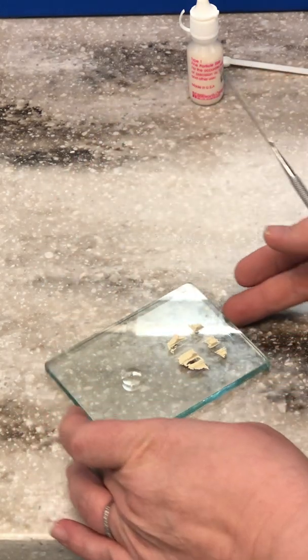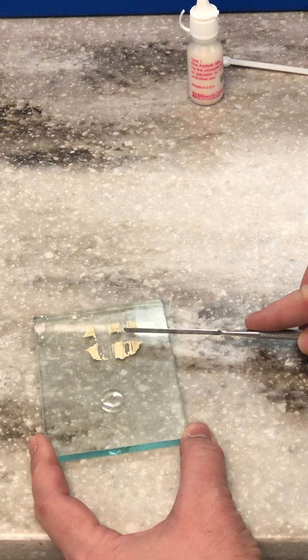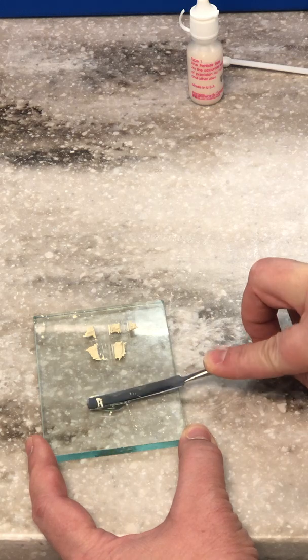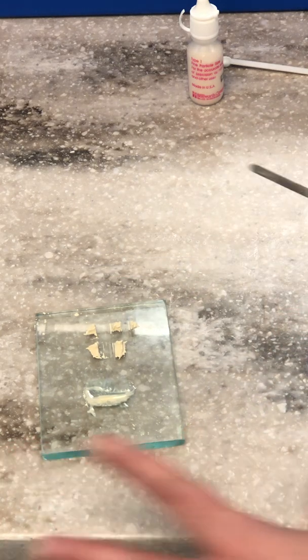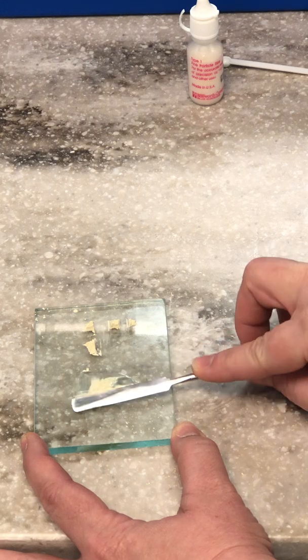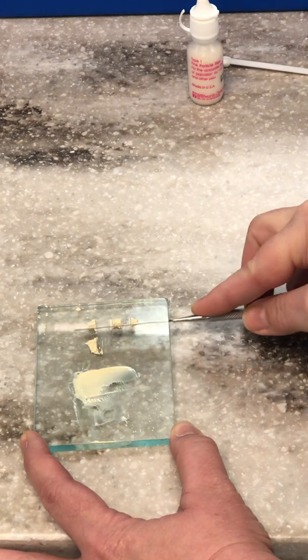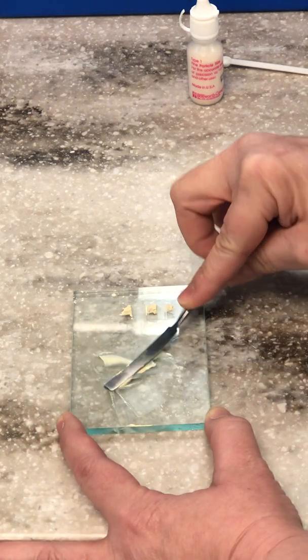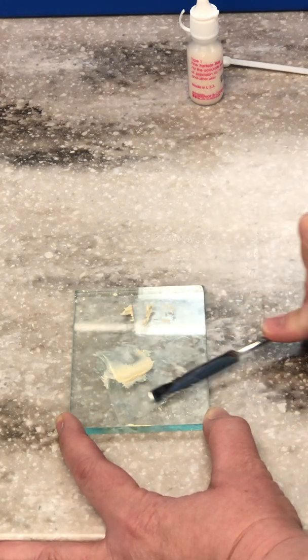I'm right-handed so I'm going to turn it so you can see it a little bit better. Keep it completely flat, bring all of it over, and go back and forth. Don't push down, don't do it in a circle because you're going to push air into it. Take another one, go back and forth — just sliding it in there. You need to work fairly quickly.